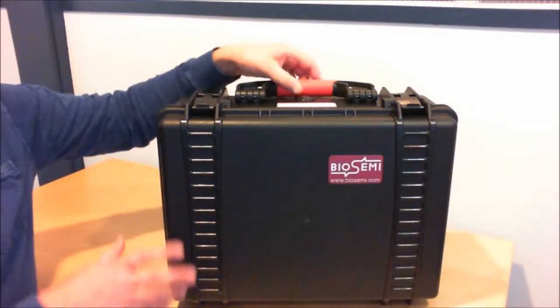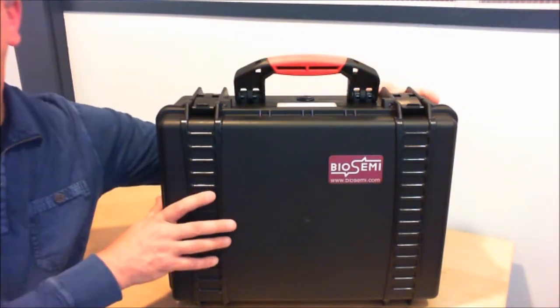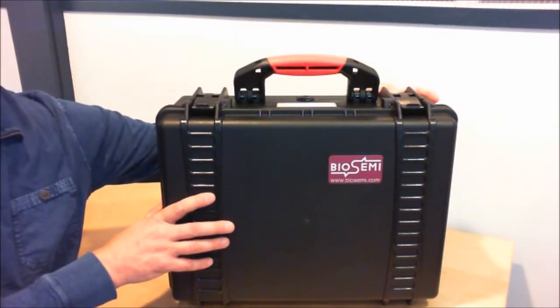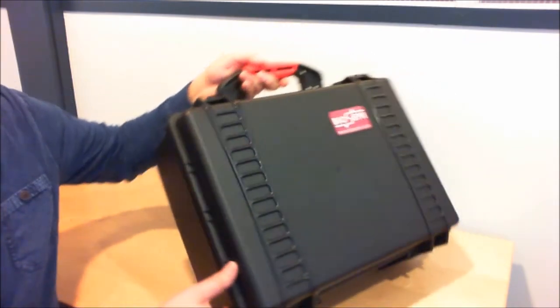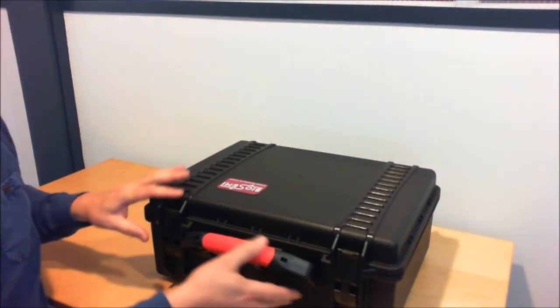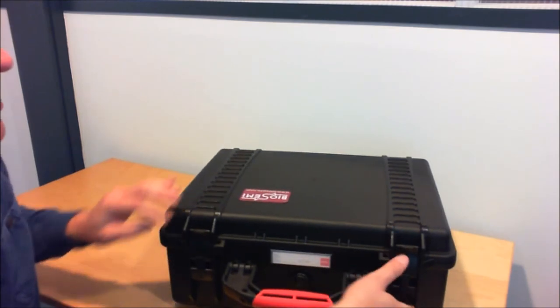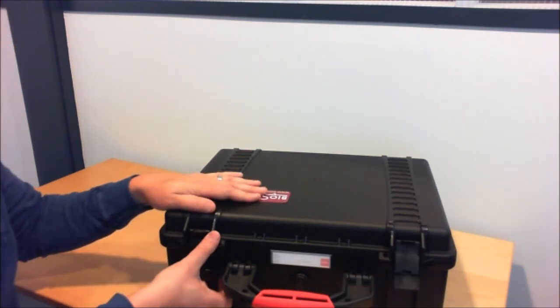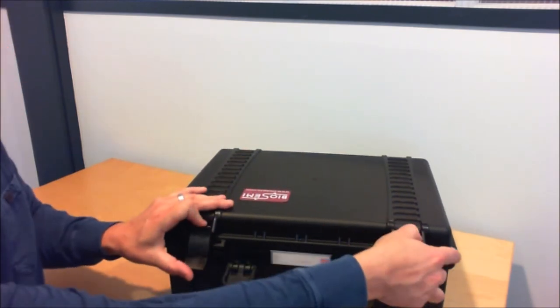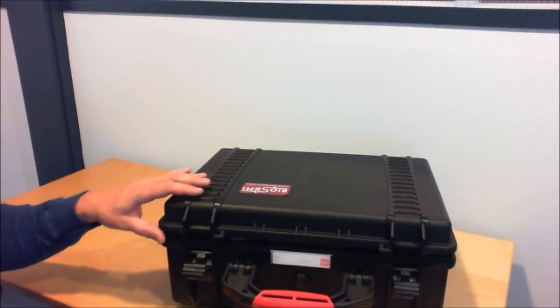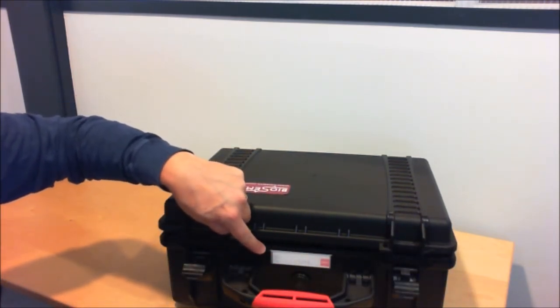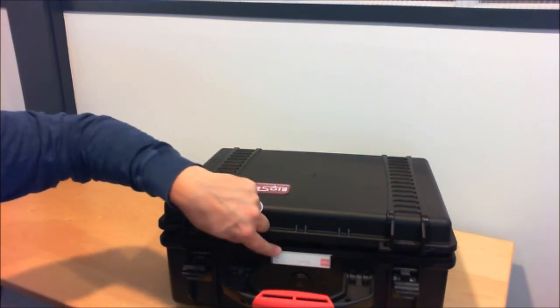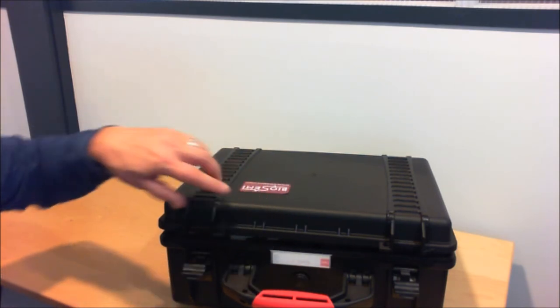It has a rugged handle and is about the size of a large briefcase or small suitcase. There are two durable latches here on the front—pull up and then pull out. There's a nameplate here so you can have your identification directly on the case.